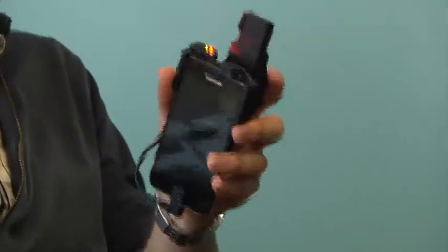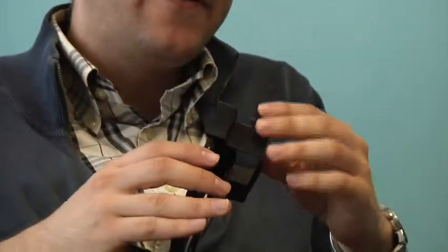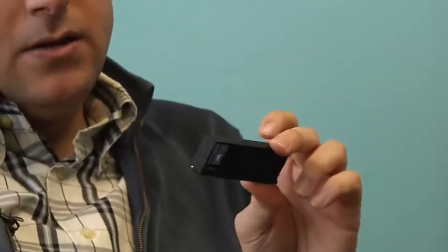This is not a microscope, what I'm showing here. It's something more universal than a microscope in the sense that this is a digital universal reader for essentially rapid diagnostic tests. Rapid diagnostic tests are tests that you can use to diagnose diseases like malaria or HIV or TB or sexually transmitted diseases. Literally, there are hundreds of different types of rapid diagnostic tests, and it's like a pregnancy test in the sense that you have to read it manually.